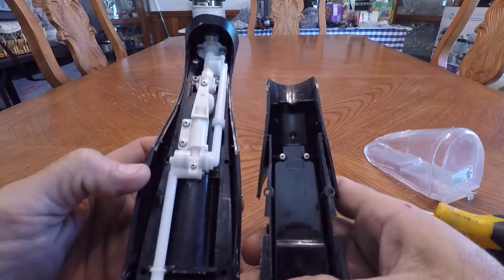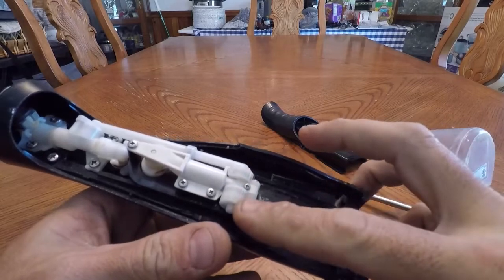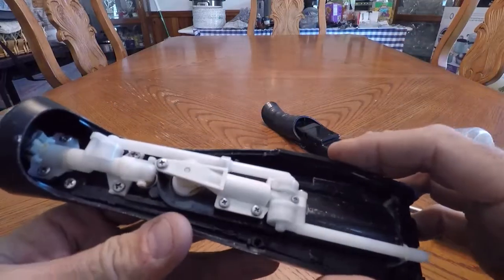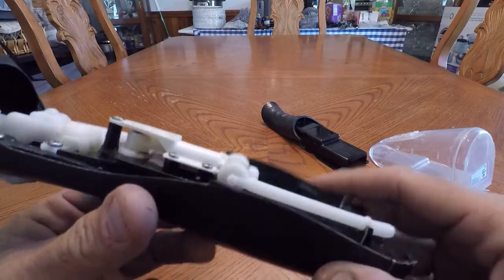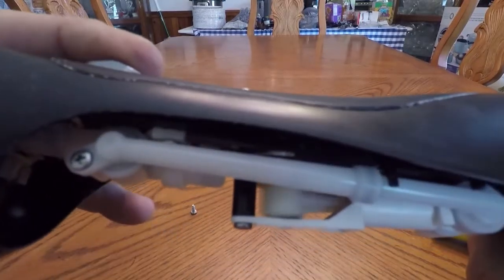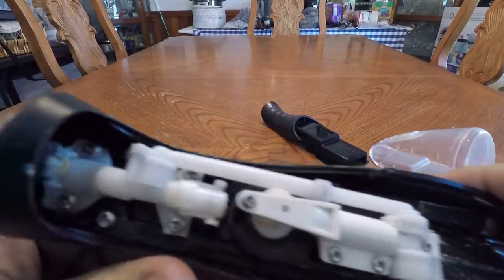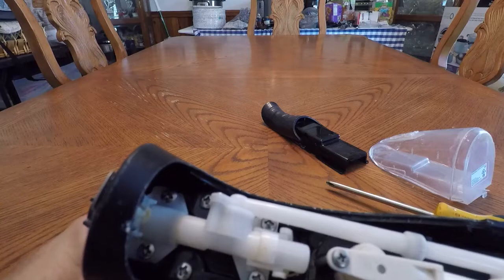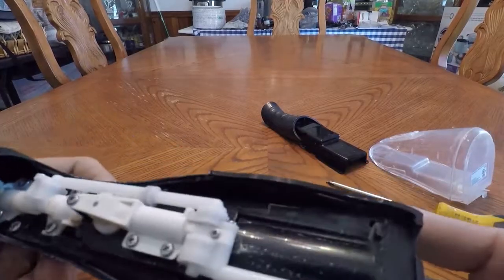Here's the whole mechanism. Back cover. Water inlet tube. Water outlet tube. Still don't see the battery. It's a little piston pump — isn't that cute? There's your high and low pressure switch. This thing is still pretty heavy.